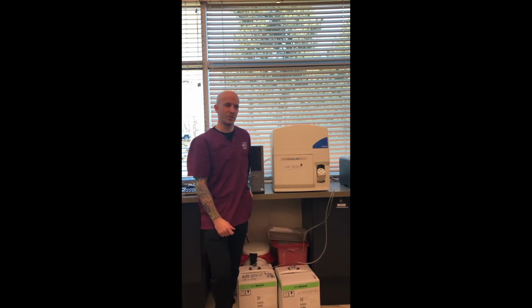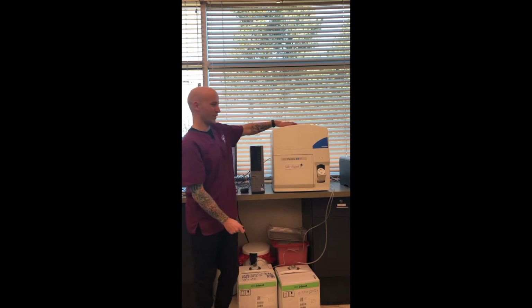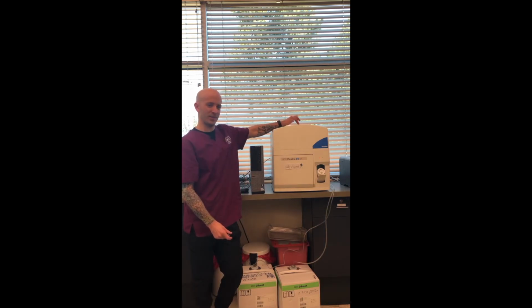My name is Stephen Platt. I'm with North Idaho College's Medical Lab Technology program. And today I want to talk about our automated hematology analyzer. And we use this for automated CBCs and automated differentials in our classroom laboratory.